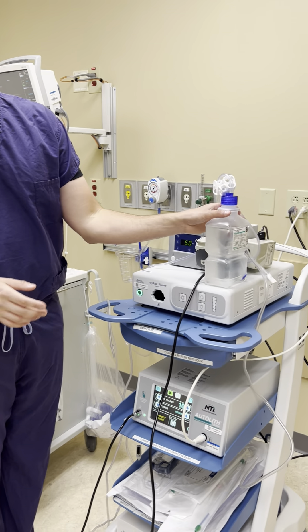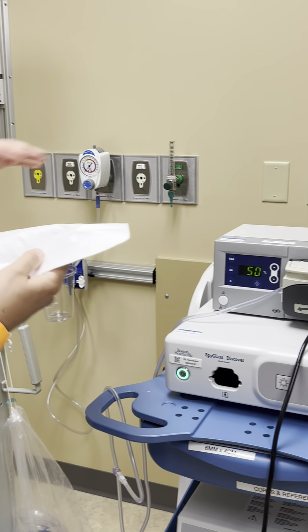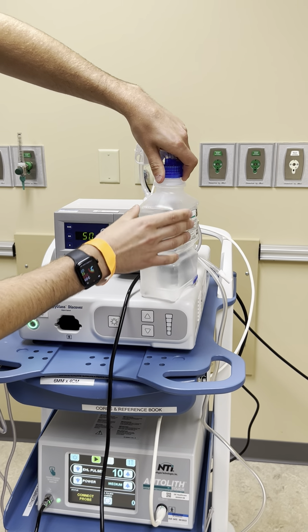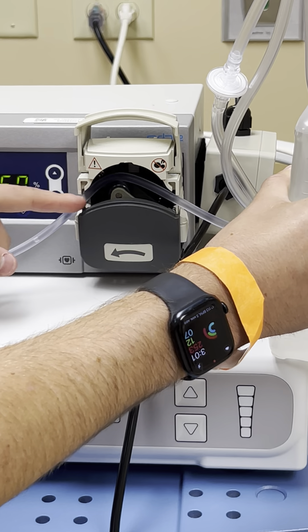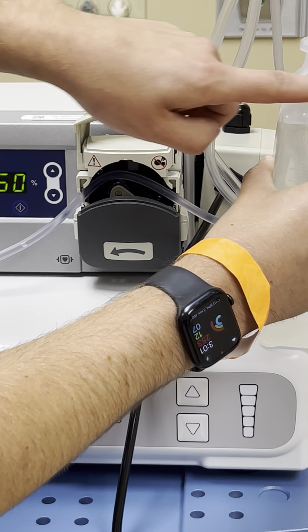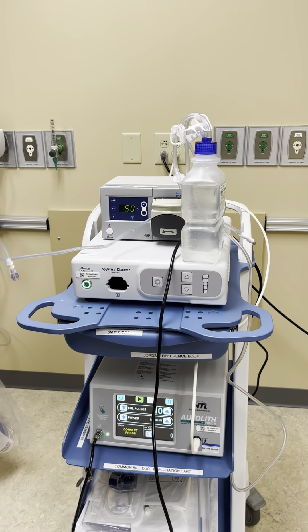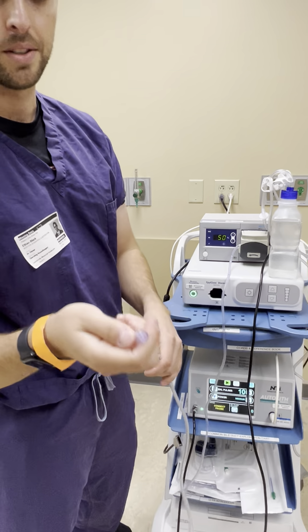The next thing you're going to do is grab a thousand milliliter bottle of saline and your irrigation tubing. This is what the packaging looks like and you'll take your blue cap and twist that onto your saline bottle, then feed the tubing right through this little system here. It has an arrow so make sure your tubing is going from the bottle following that arrow, then keep that shut. At the other end you'll have the luer lock, which we're going to attach to our scope.